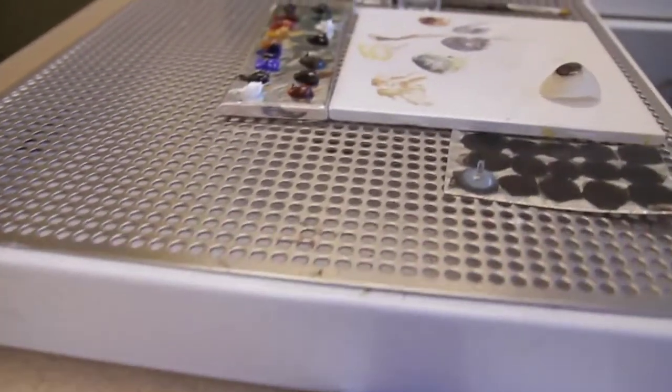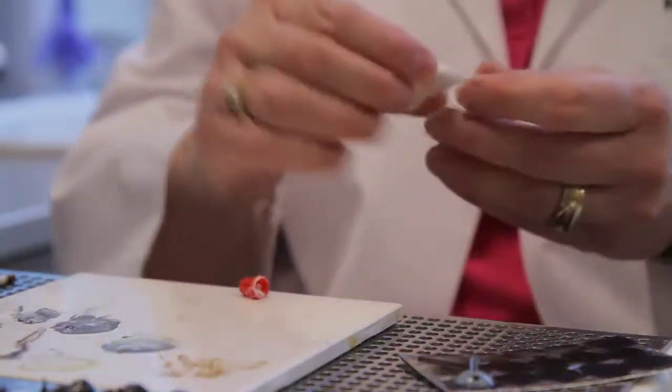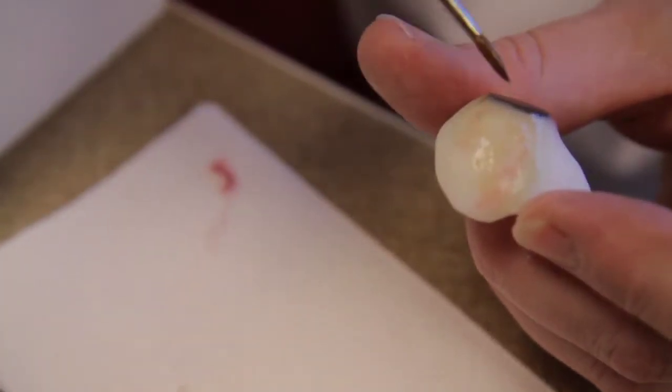There are two sessions of artwork. This will be the first. The next time they come back, I have opened up their color and got it ready to do the tint and vein. The tinting is actually painted, and the veins are silk thread.